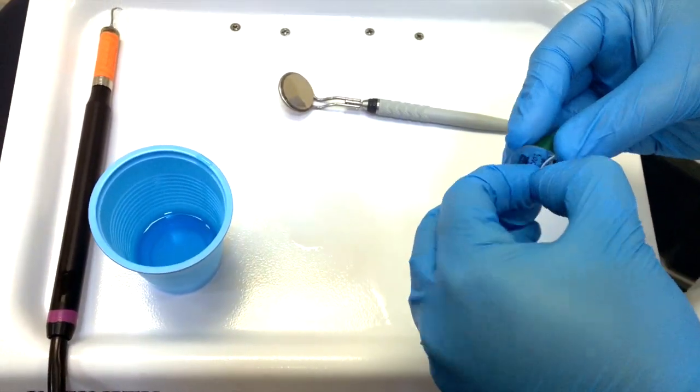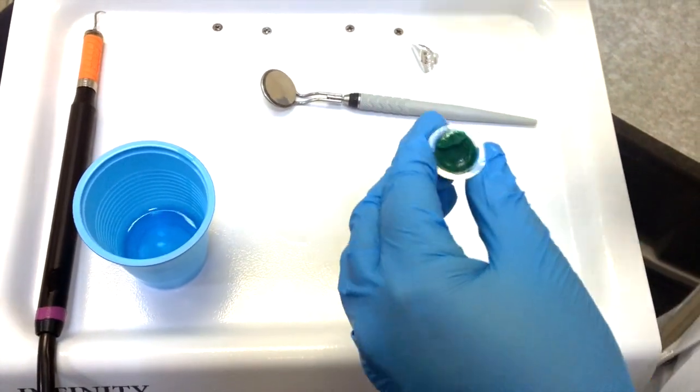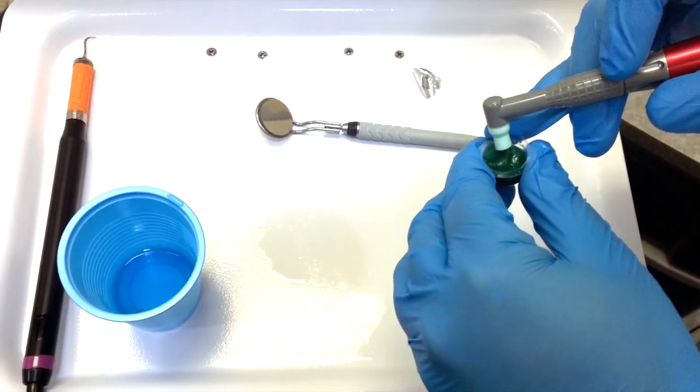So what you're going to do, I recommend fine. I've only used fine with this so we don't scratch the mirror. But get a little bit of fine paste.